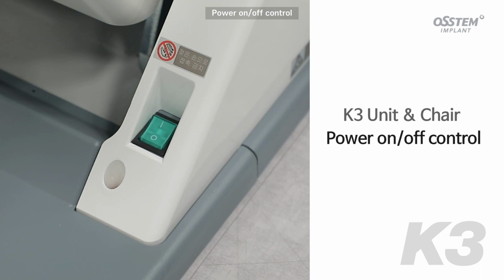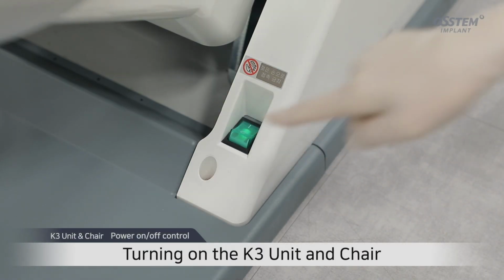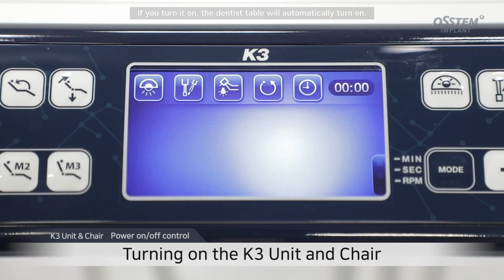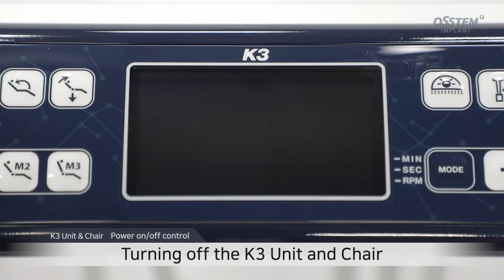Power on-off control. First of all, turn on the power switch at the bottom right of the chair. If you turn it on, the dentist table will automatically turn on. If you turn it off, the dentist table will automatically turn off.